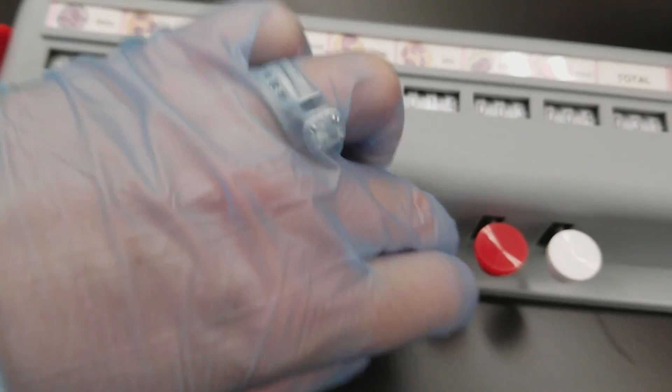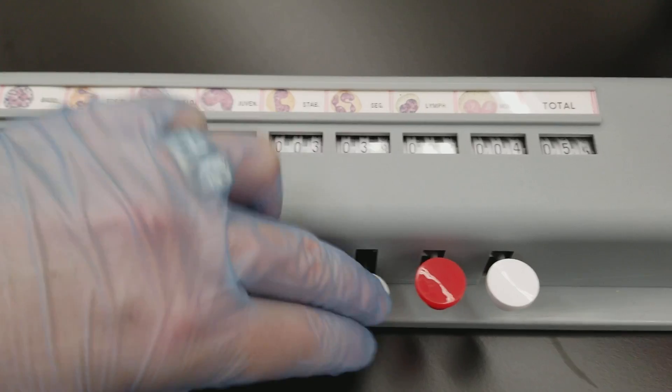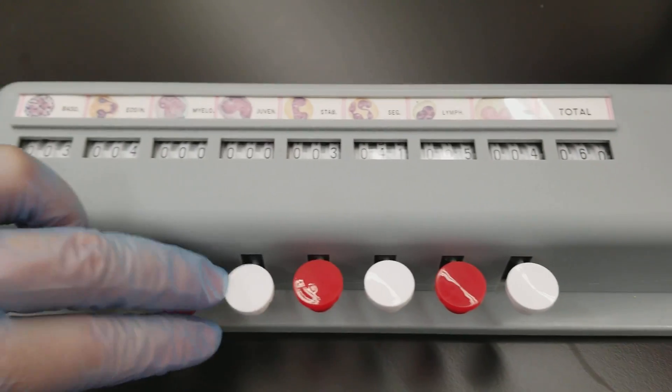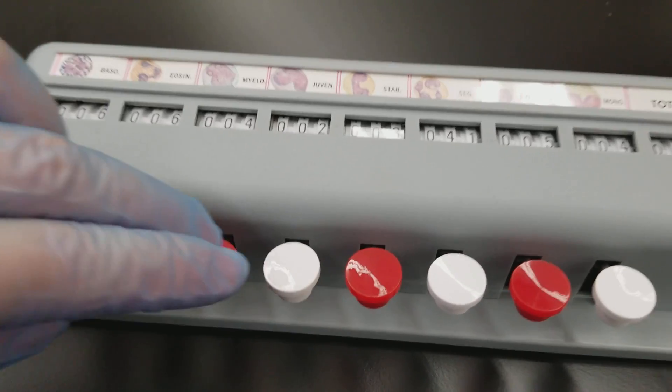And when it gets to 100 cells, it's going to ding. So I'm just gonna press and get us up to 100. And then we'll be back.